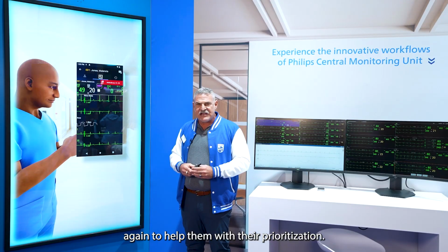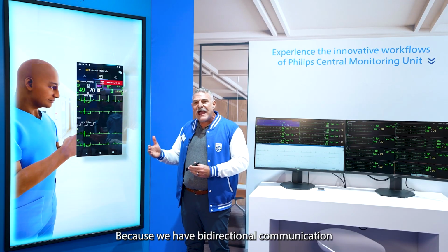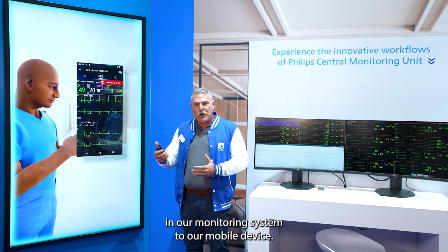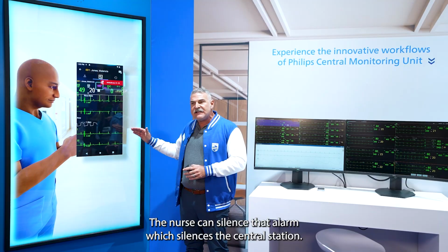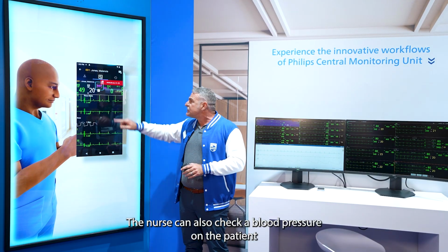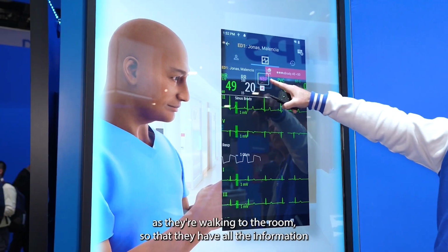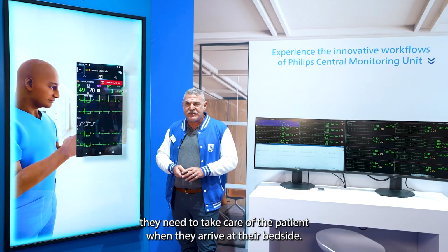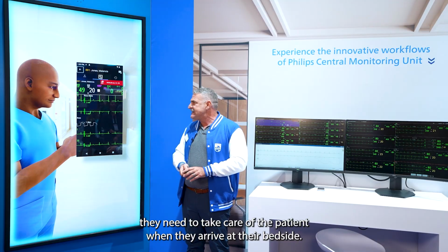Because we have bi-directional communication in our monitoring system to our mobile device, the nurse can silence that alarm, which silences the central station. The nurse can also check a blood pressure on the patient as they're walking to the room so that they have all the information they need to take care of the patient when they arrive at their bedside.